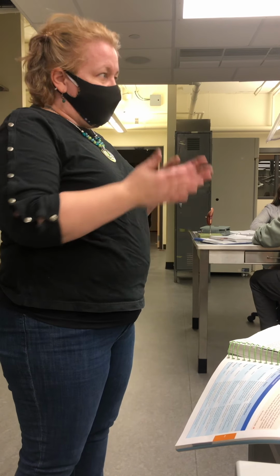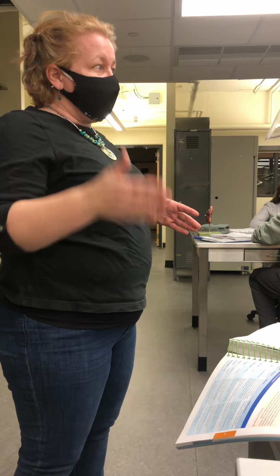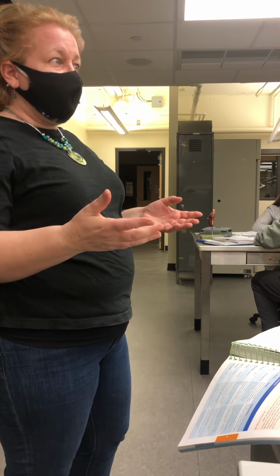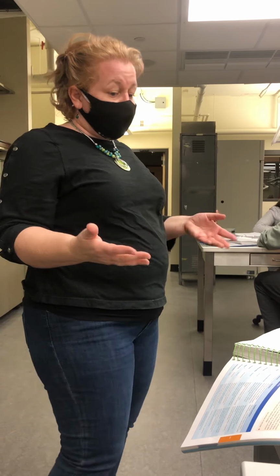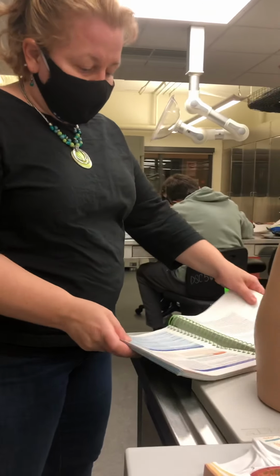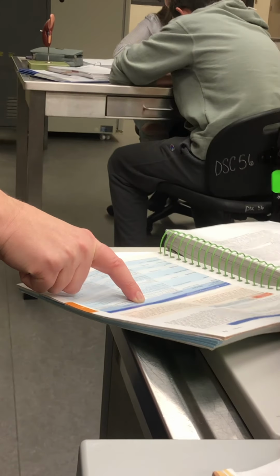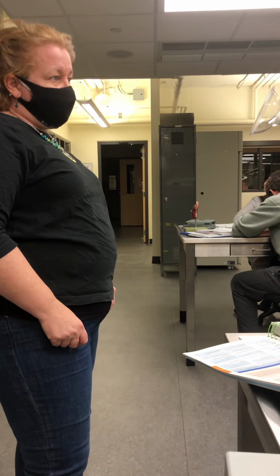So what we have is a control strip, and then we have unknown A, B, C, and D. I want you to be able to look at a test strip and acknowledge if the person has a particular condition. If we look on page 619, at the bottom, Table 41.1, you'll notice that there are 8 different substrates that are shown.